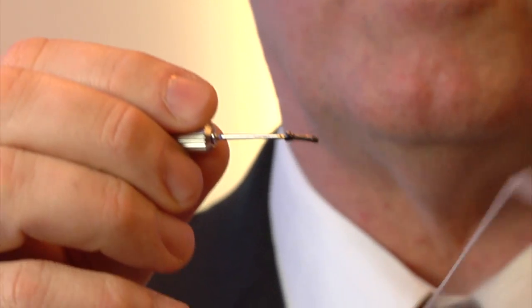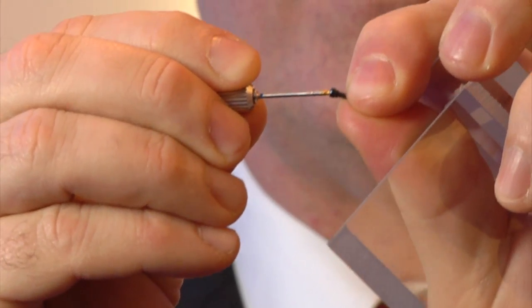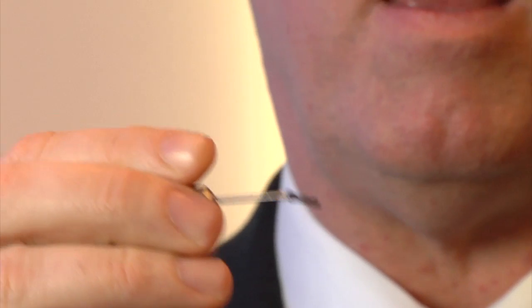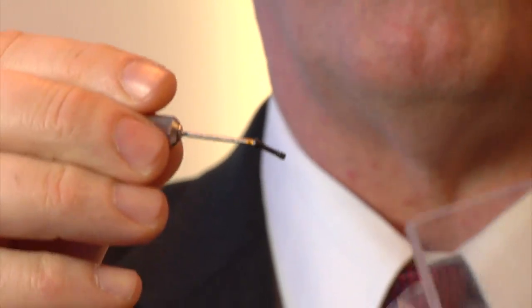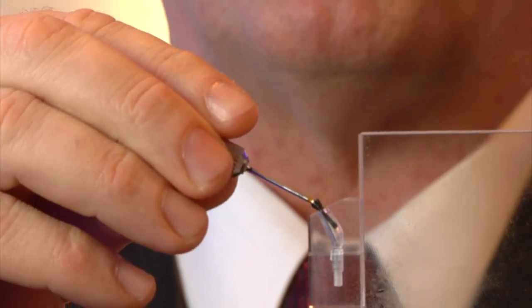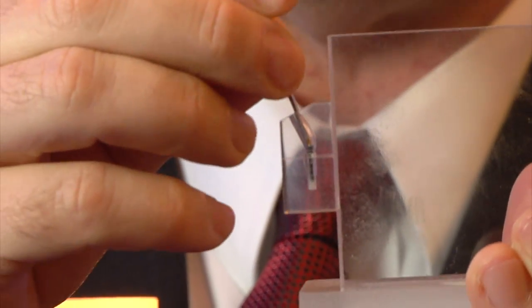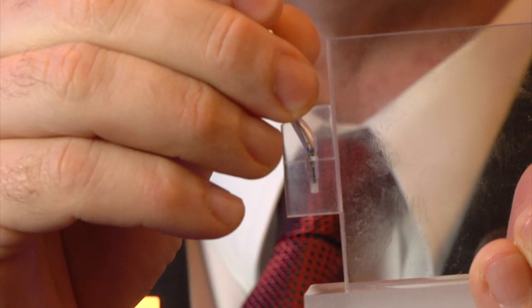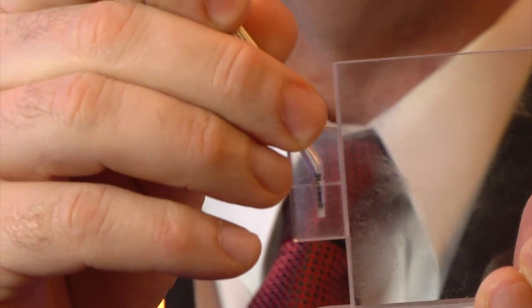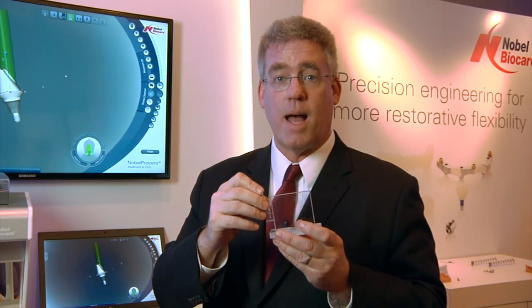This means that we're able to bend the driver like this, go in at that 25-degree angle, and place it directly back into the screw channel. For our laboratories, that means the laboratory is going to be able to provide many more restorative aesthetic options for our clinicians.